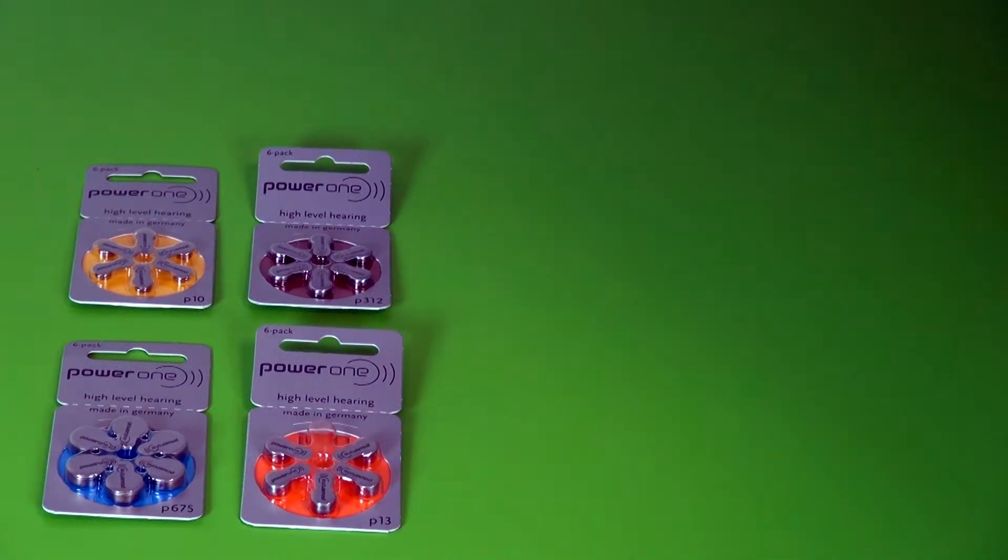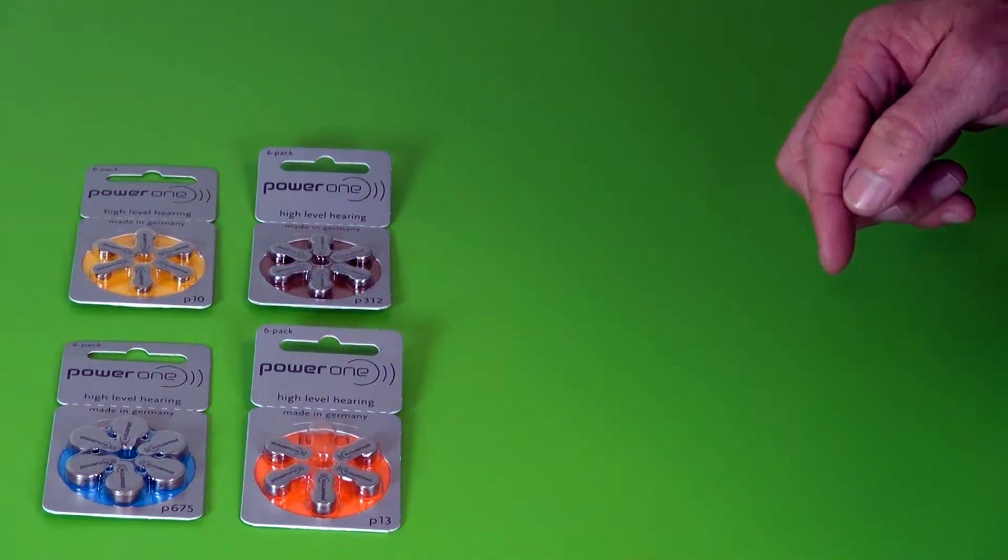All hearing aids need a battery to operate. There are four different sized batteries and only one of these will fit your hearing aid.